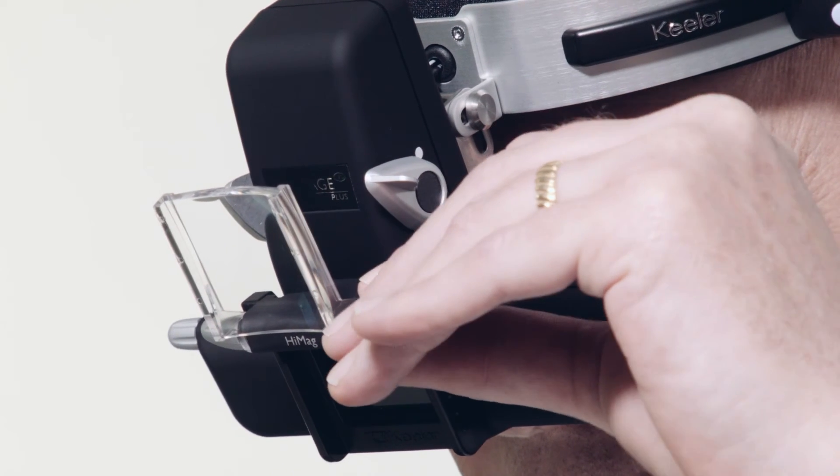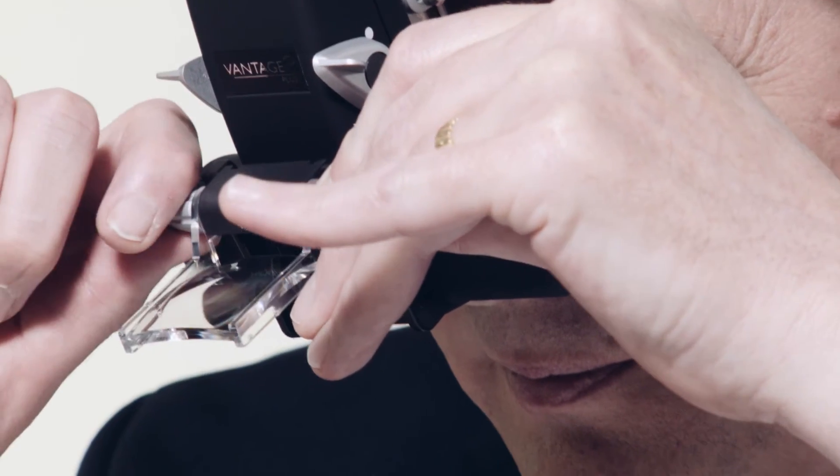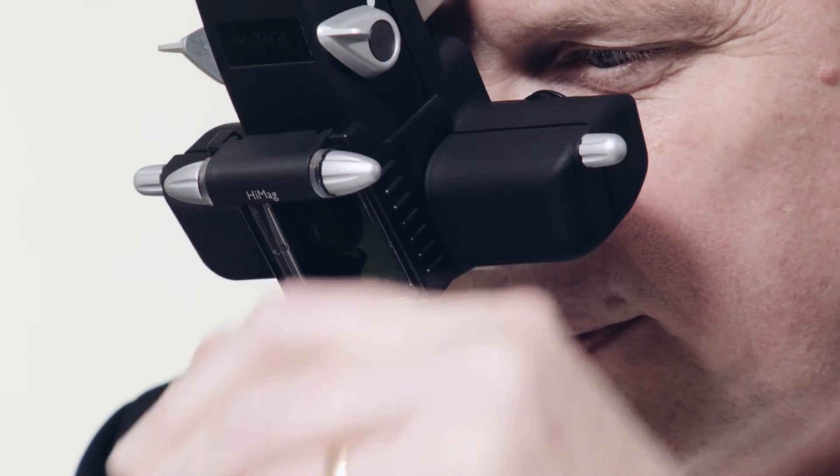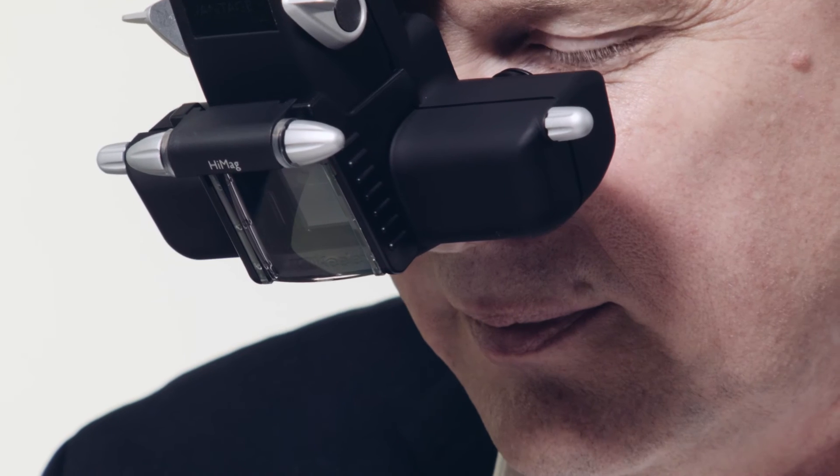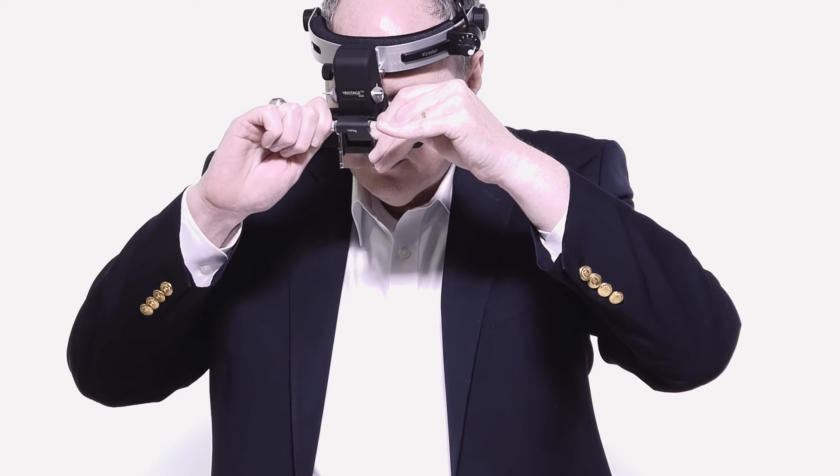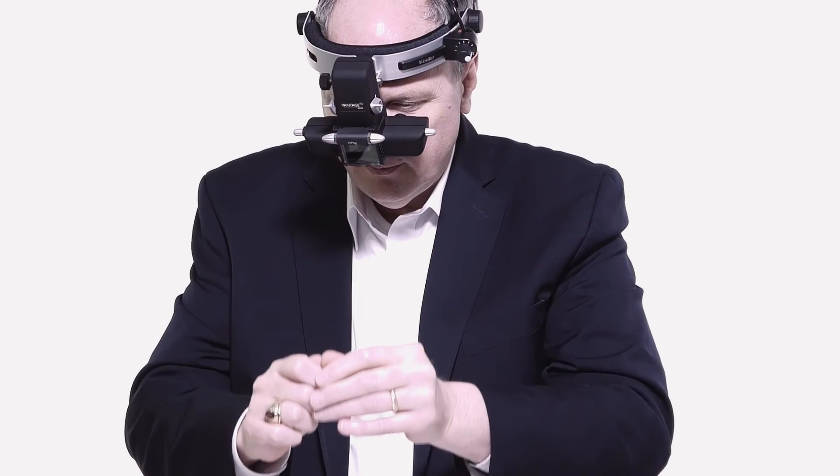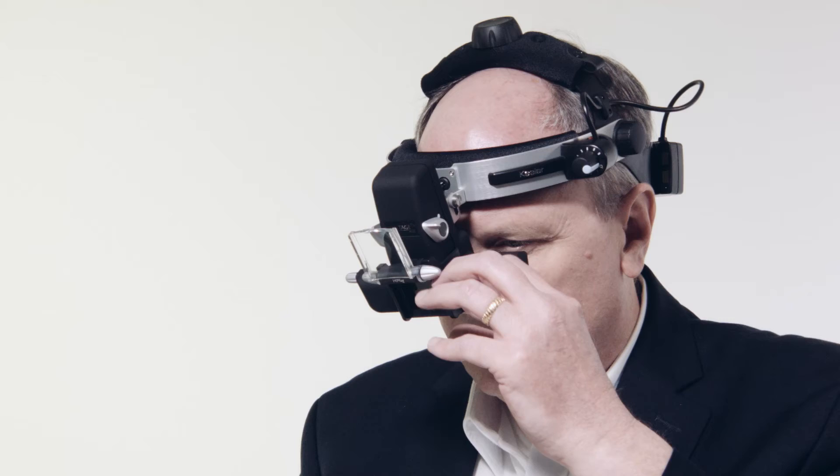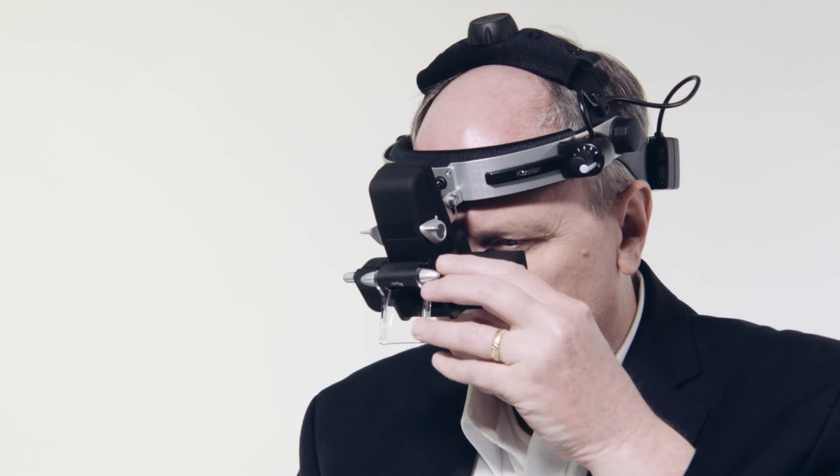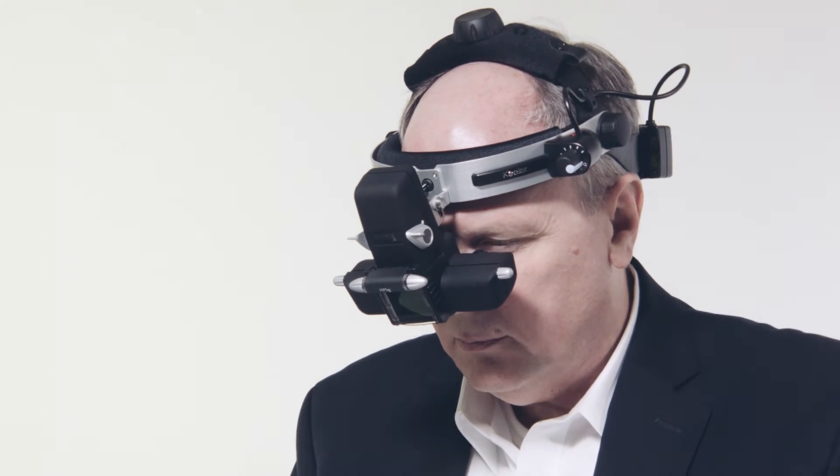The patent high mag lens comes standard with every Vantage Plus unit and offers 60% more magnification when in place. The extra magnification is very useful for patients that are unable to be examined with a biomicroscope or increased visualization of the optic nerve and head vessels.